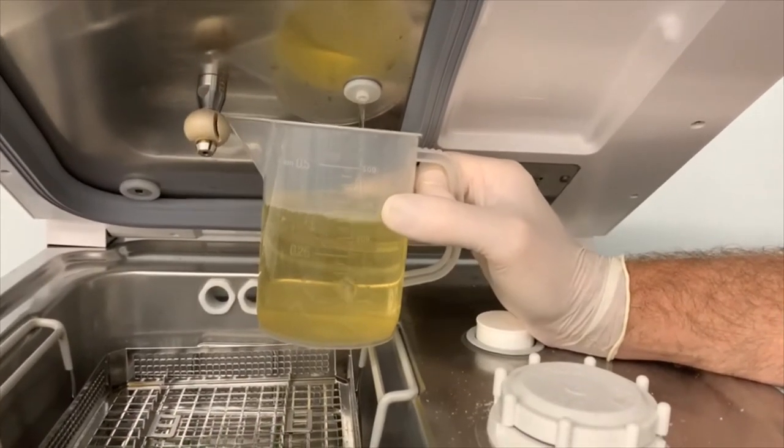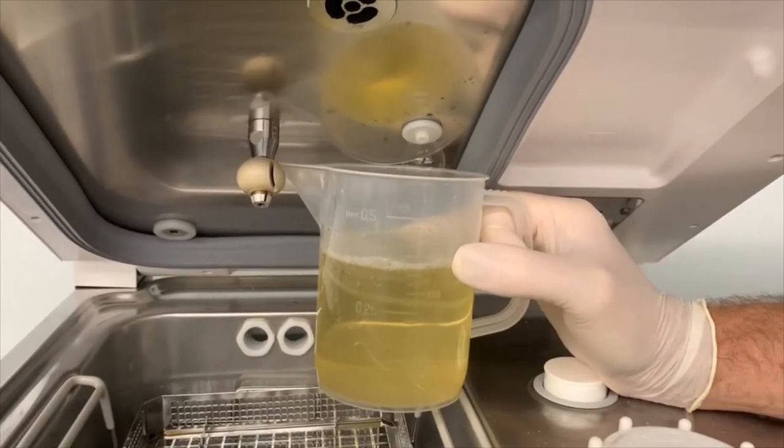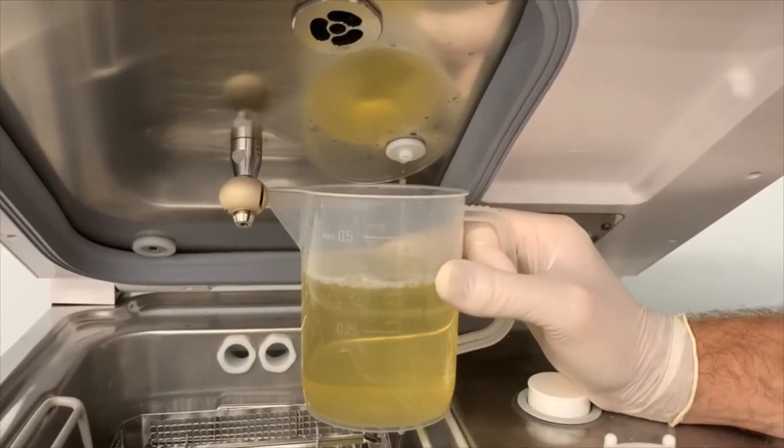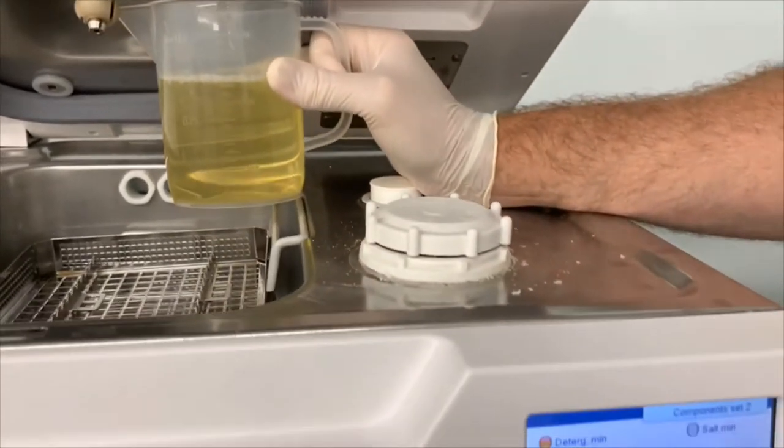Okay, so you can hear it's changed sound and it's just pumping out the last little bit of detergent. Once it's sounding terrible and no more liquid's flowing, now it's good. We can turn the chemical pump back off.